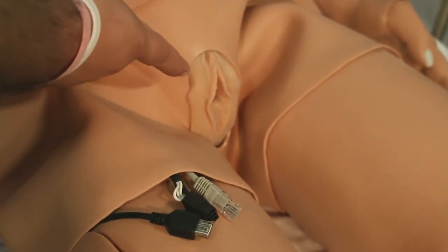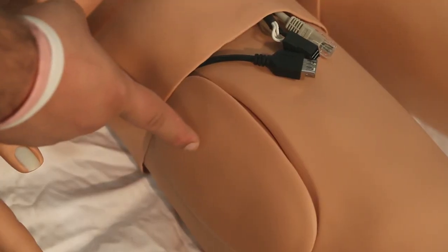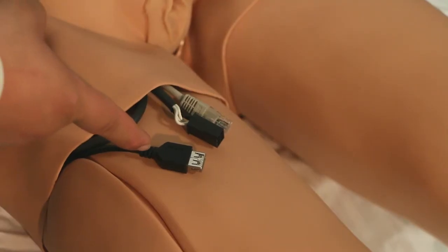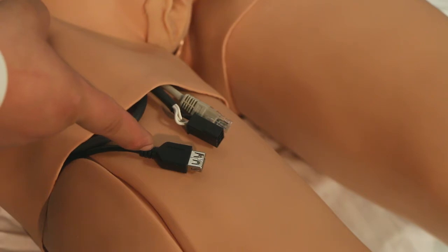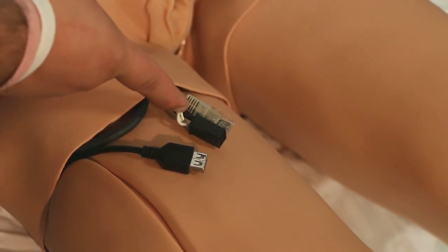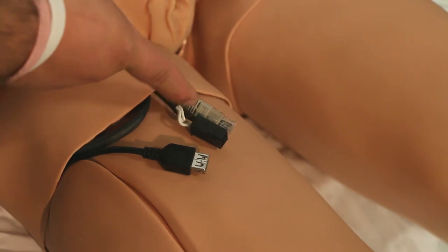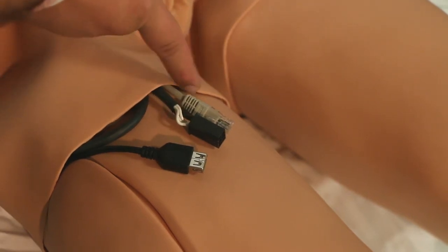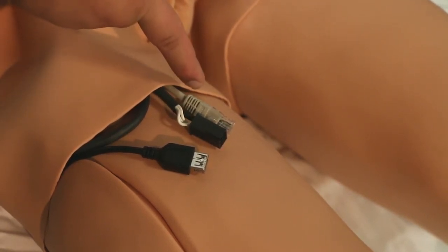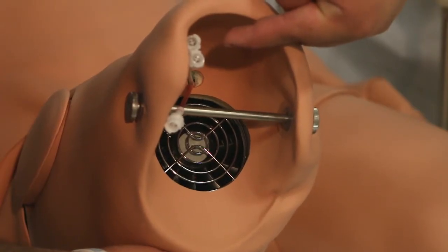Interchangeable genitalia supporting catheterization, thigh IM pad, a USB port, external power connection, and CAT5 cable. Of these, only the external power connection is used by the end user.